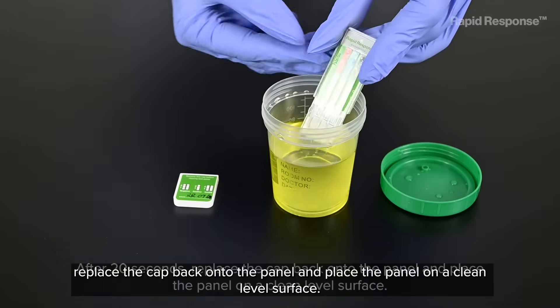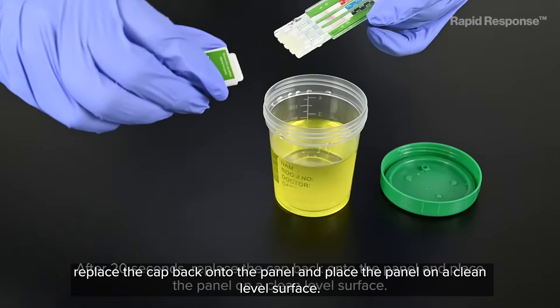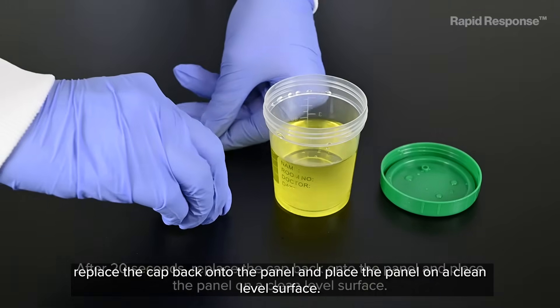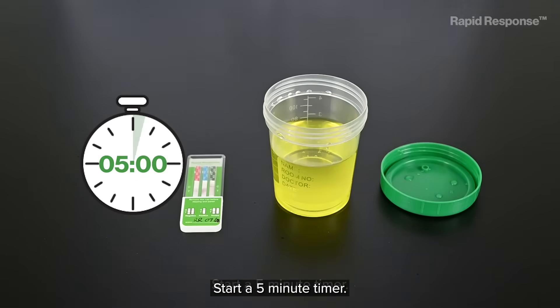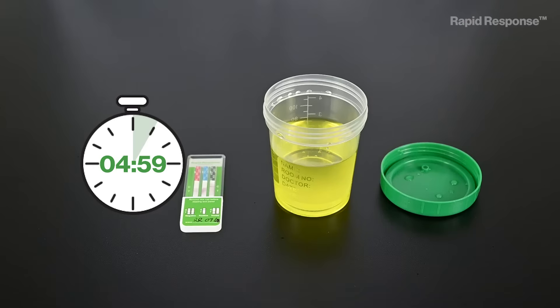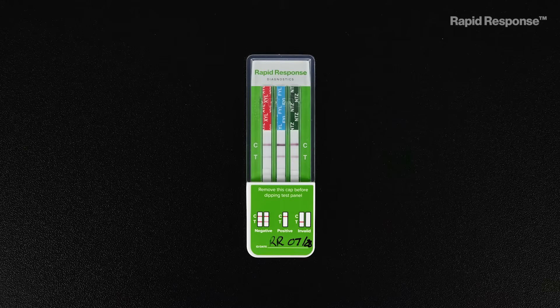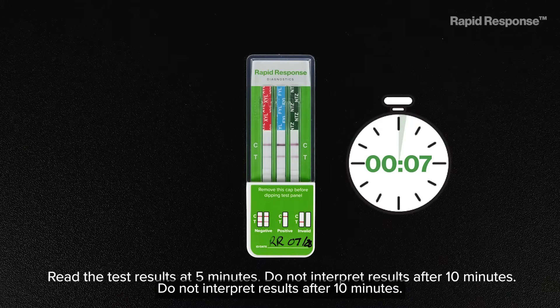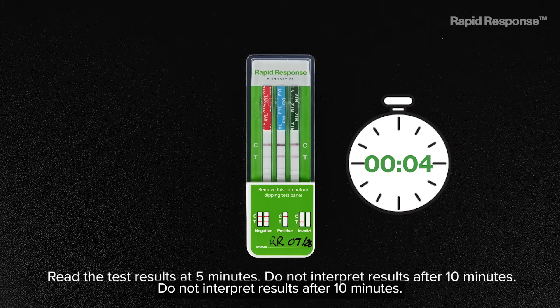After 20 seconds, replace the cap back onto the panel and place the panel on a clean level surface. Start a 5-minute timer. Read the test results at 5 minutes. Do not interpret results after 10 minutes.